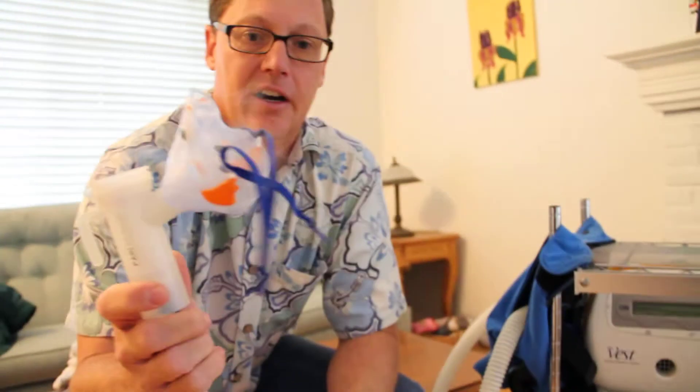As I put this in, it atomizes to the patient, and I want to be as effective as I can for my children so they're getting the most use of the medicine. My problem was when I started looking at the different studies, they were paid for by the drug developers and only reference their own equipment. There's no reference point for other equipment like this, which costs about a third less.